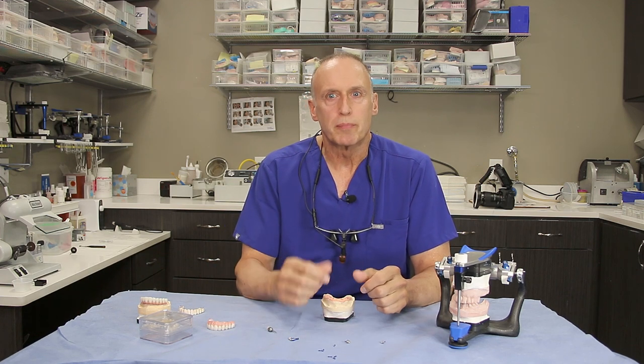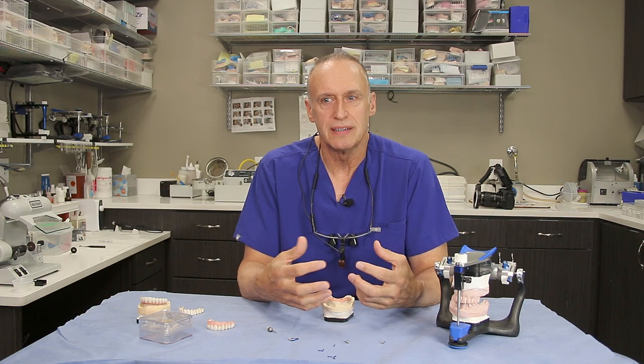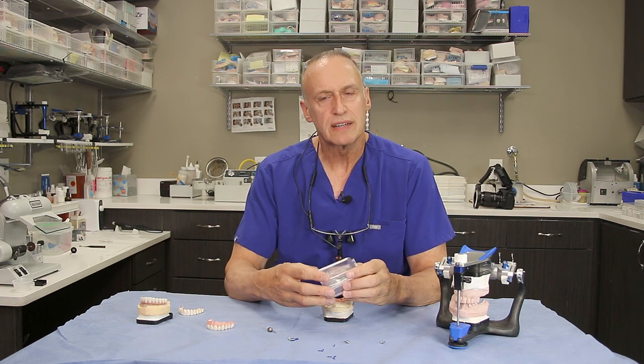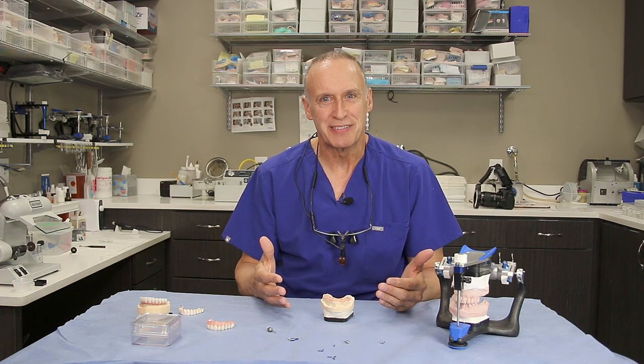You'll hear in many of my videos I talk about implant bridges, I talk about not using angled implants or angled abutments, and I hope today's demonstration is going to show you the profound difference between the prostheses that implant doctors claim to be the best for you. I've got an example of the implant bridge right here and we'll get to that in just a minute. But I wanted to start off and explain some of the parts and pieces today. It's going to be very technical so you might need a cup of coffee to go through this.